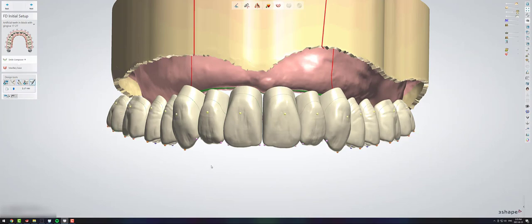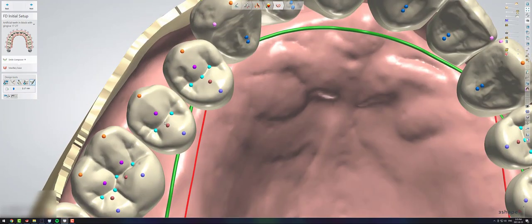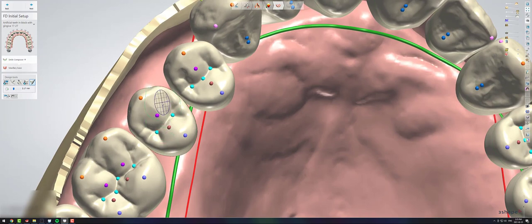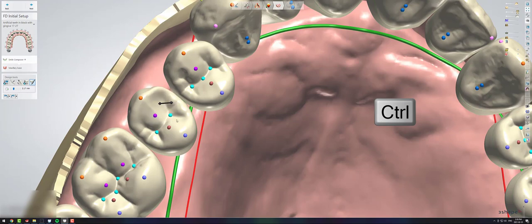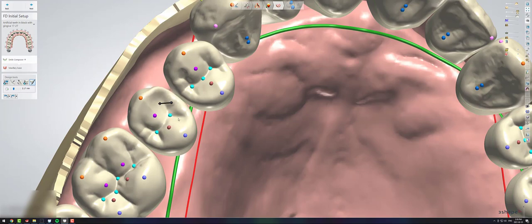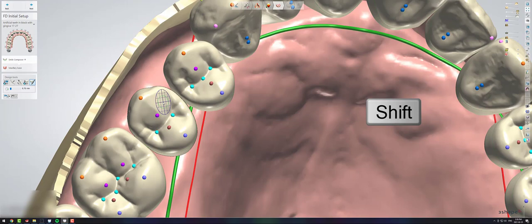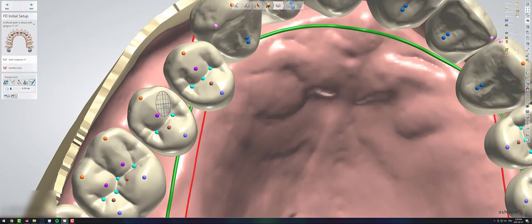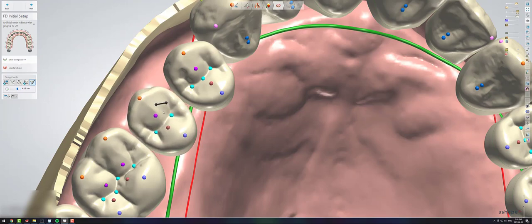Now in the morph tool, you can see if I grab it and I move my mouse around, I can move it in all directions. If I hold control and I move my mouse around, it only goes up and down according to where that little black arrow is. I can also make this circle a little bit bigger by holding shift and rolling the rollerball. So here you can see I'm affecting a really small area. And if I hold shift and roll the rollerball, I can affect a really large area. And I can hold control to make it so it only goes up and down.